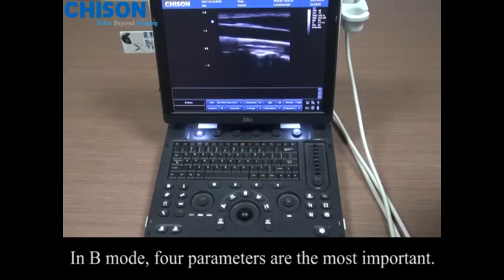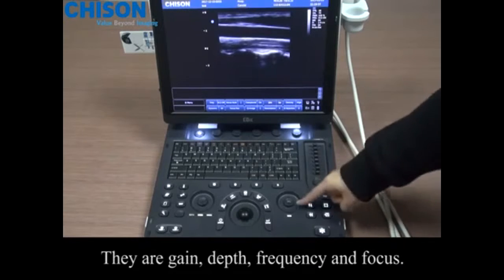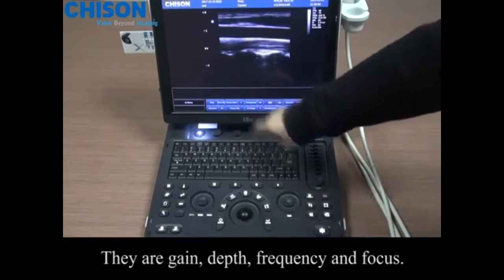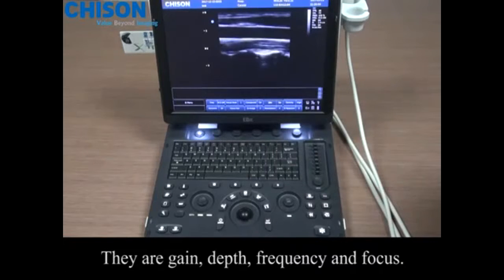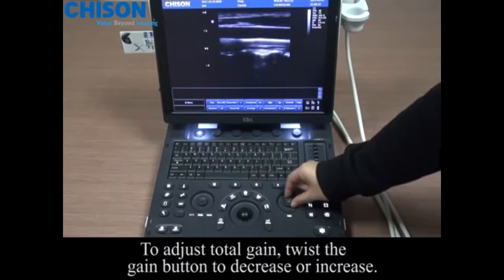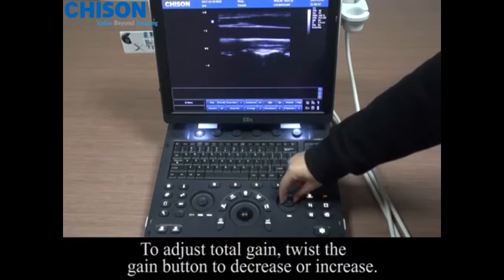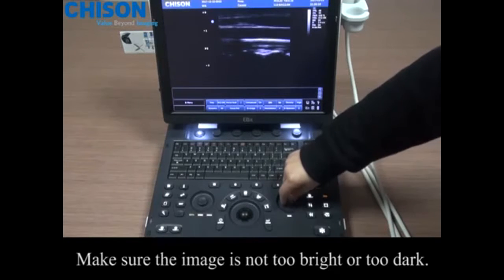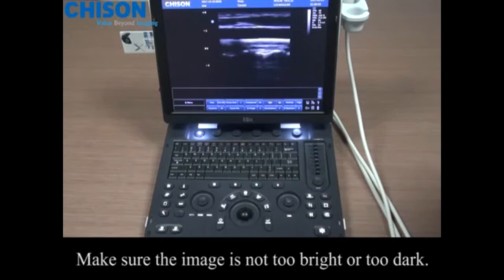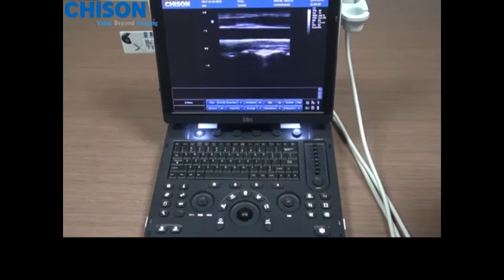In B mode, 4 parameters are the most important. They are gain, depth, frequency, and focus. Firstly, gain control consists of total gain and TGC. To adjust total gain, twist the gain button to decrease or increase. Make sure the image is not too bright or too dark.